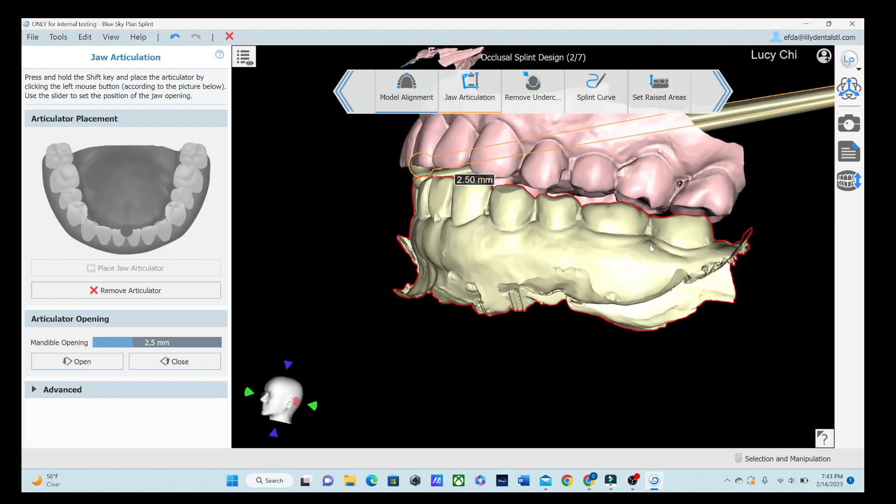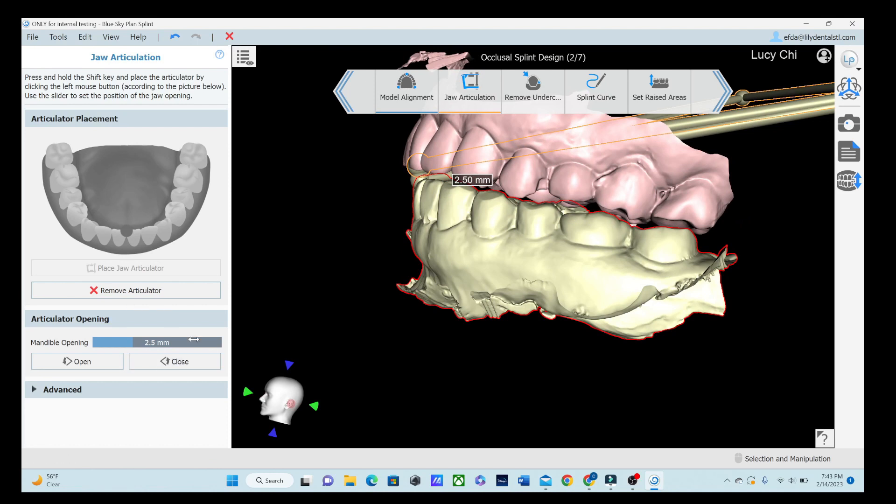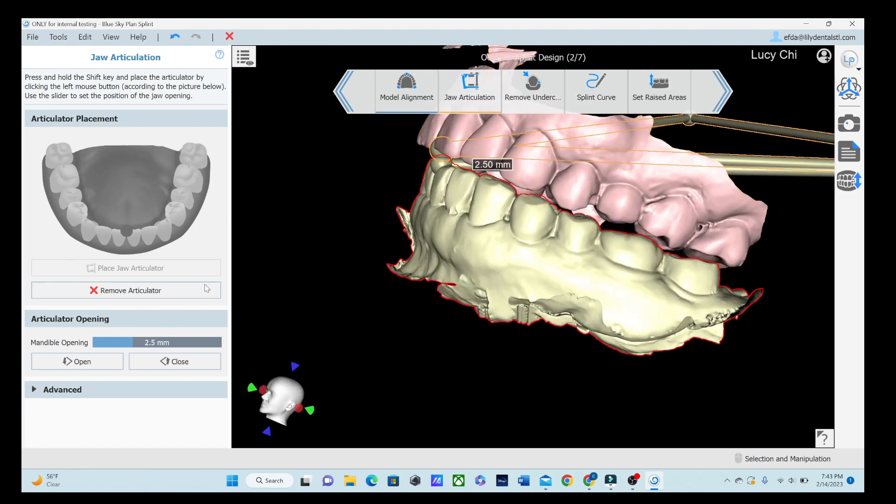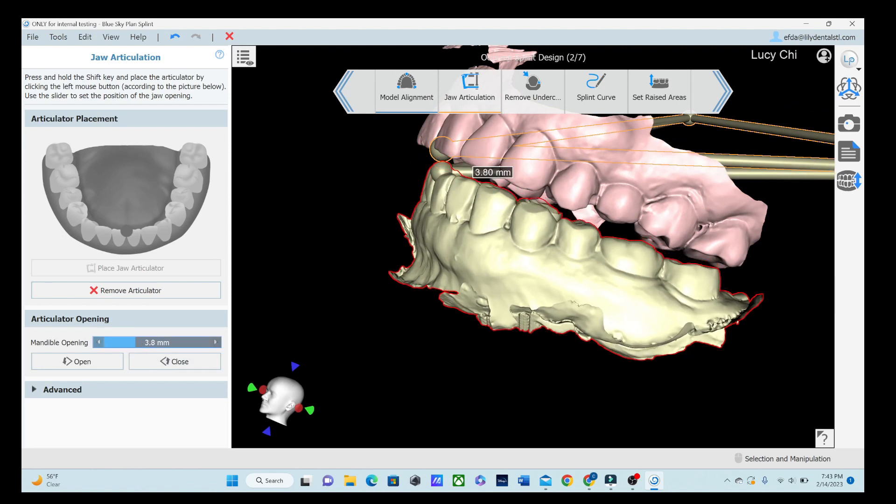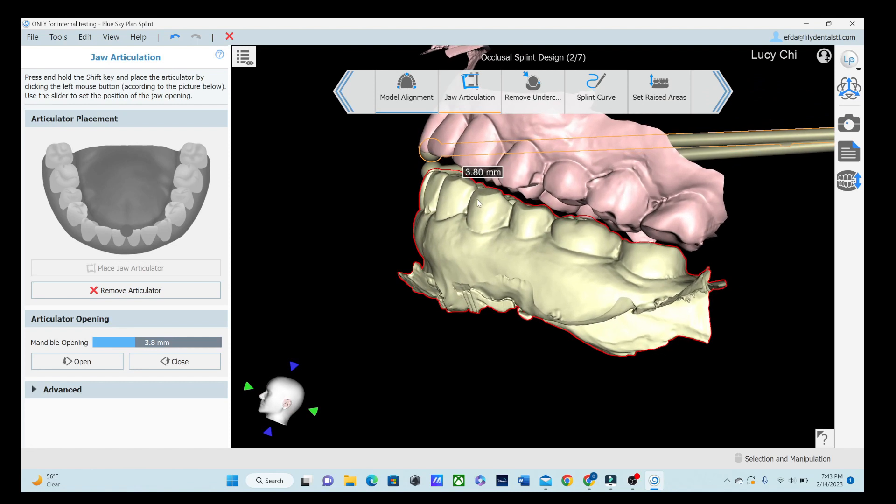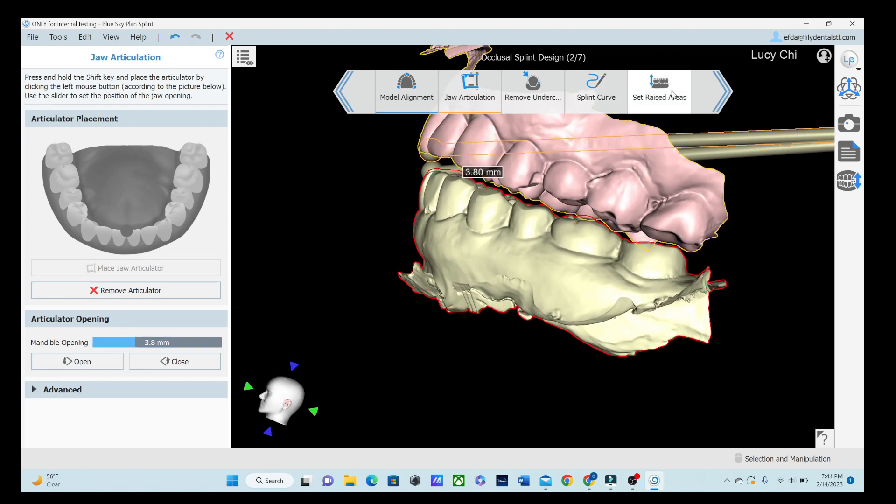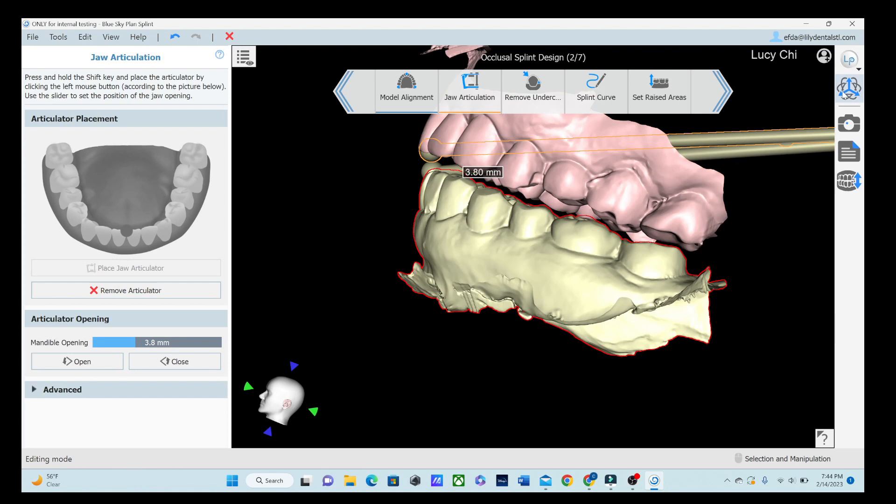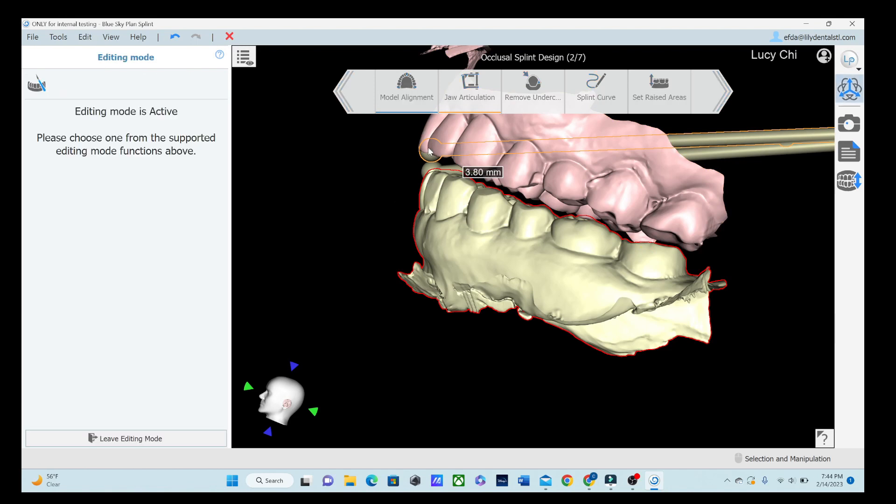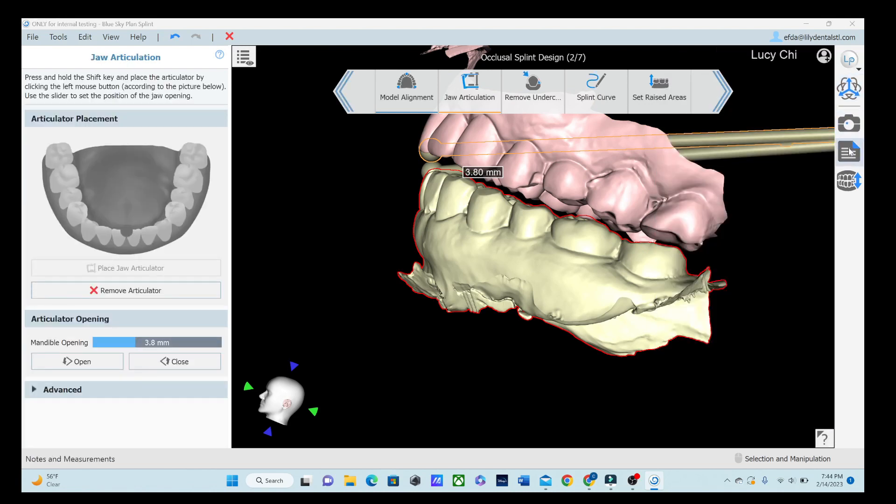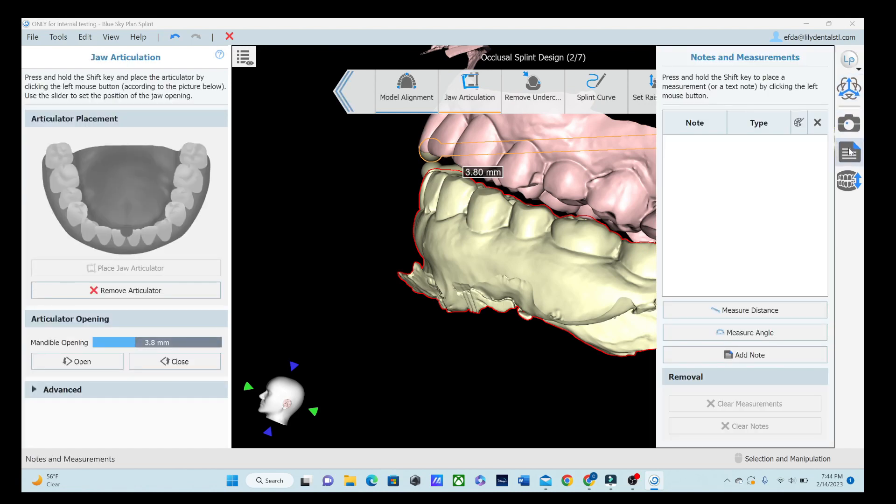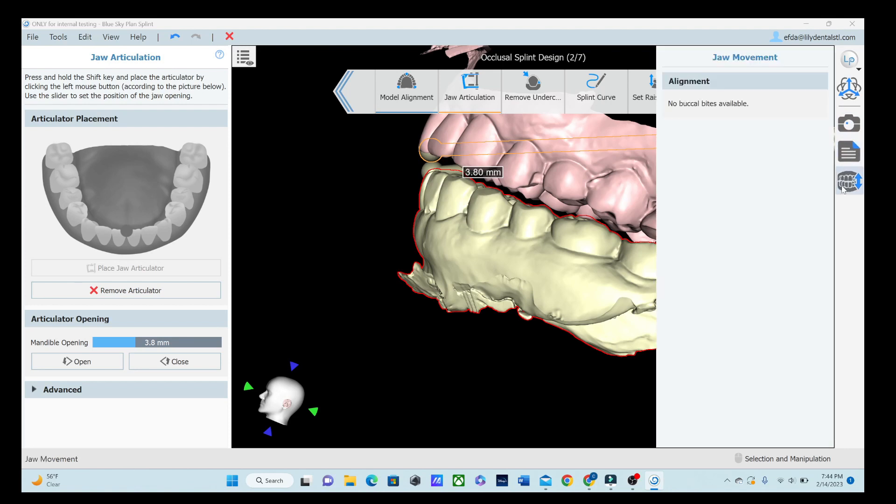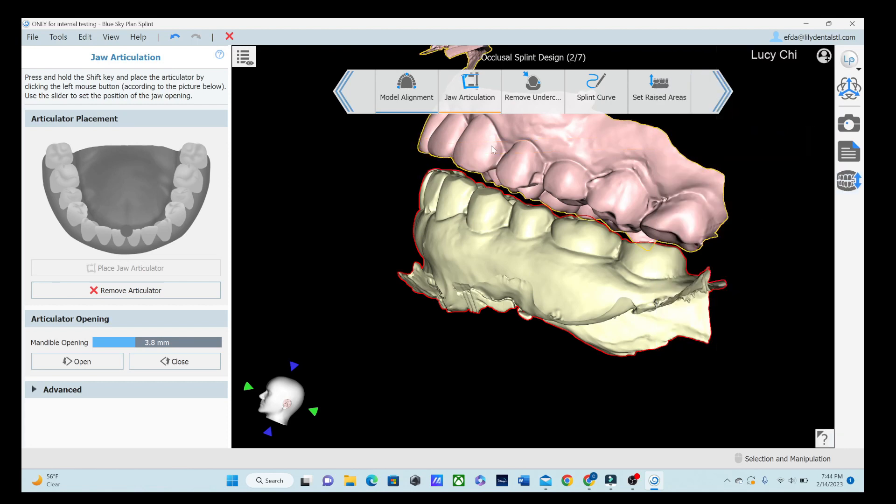So I told it to open it two and a half millimeters, but I can see now it may be open two and a half in the front, but it's not open two and a half in the back. So we're going to open it about 3.8 millimeters. And remember, we've already set that minimal thickness at one. So now that we've done that, there is the advanced setting down here, but you shouldn't need to do that. We do have the model editing mode, which you can do if you need to adjust something on here. You can take some screenshots, which is nice. Put any notes in there about it if you need to communicate anything with the doctor or anything special about it. And then there's also the jaw movements, but we don't need to worry about that right now.